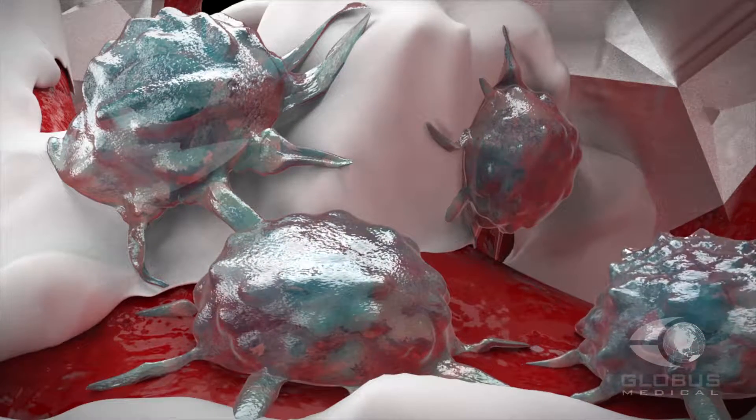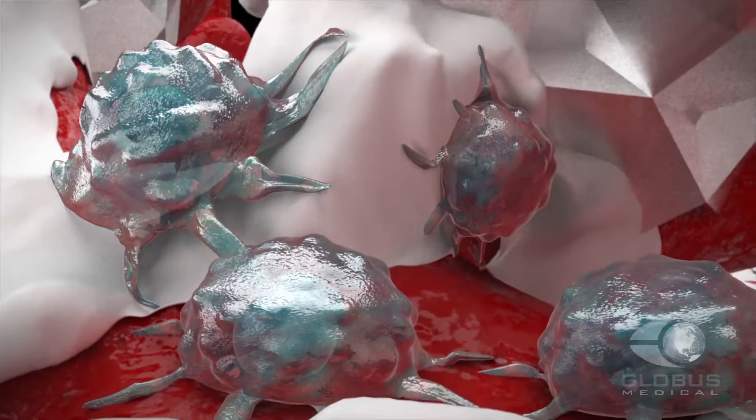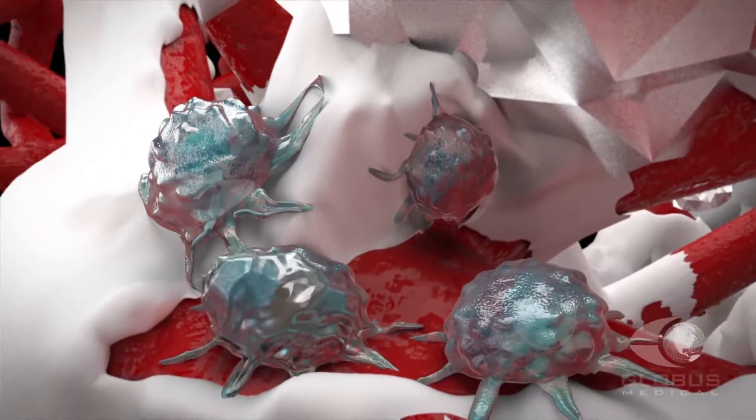Bioglass is osteostimulative and has been shown to stimulate proliferation of human osteoblasts and help accelerate bone formation.